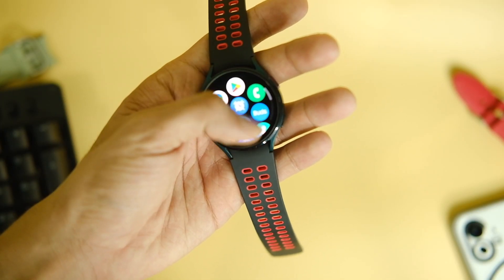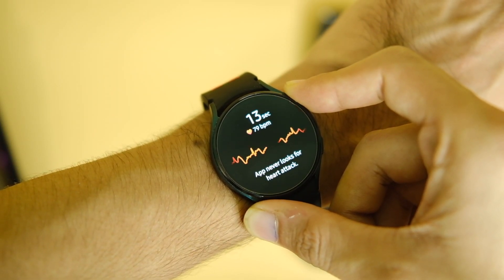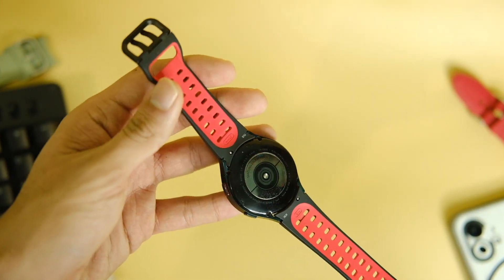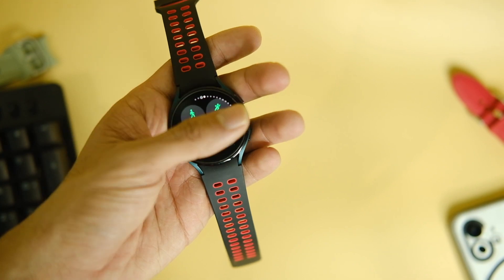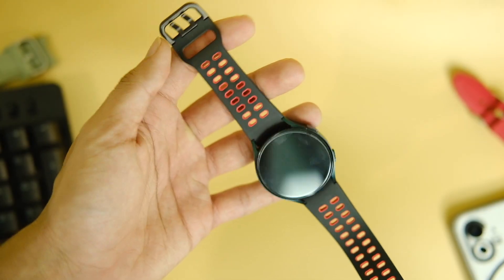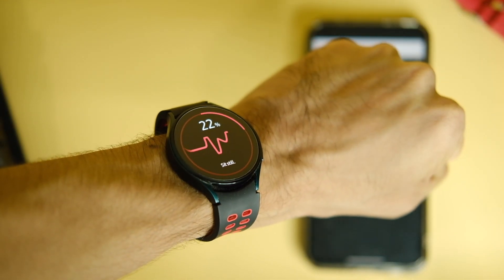What's going on everybody, this is Eros Manik back with yet another video, and this time it is something that quite a few asked me for — how we can enable ECG and BP monitoring on the Galaxy Watch 4. This is one of the best watches under 10k if you are willing to buy a proper smartwatch in 2022. It has most of the features a normal user would like in practical life, but due to regulations they have disabled the blood pressure and ECG feature in India. Don't consider it as a medical grade equipment.